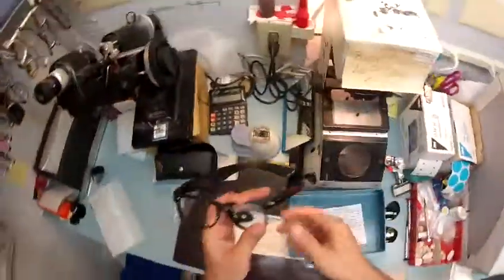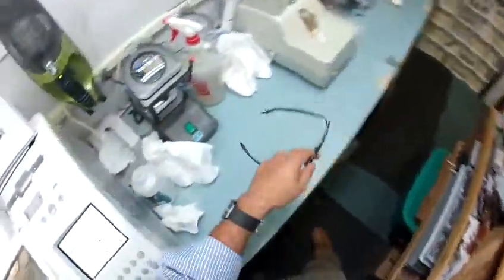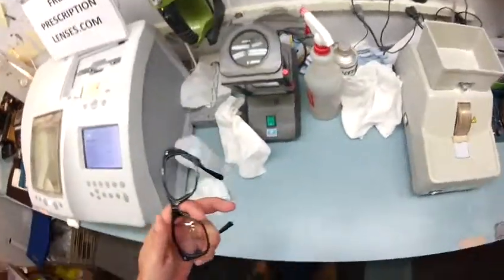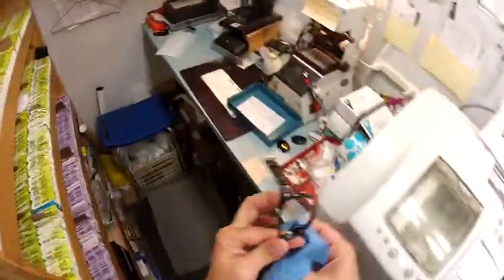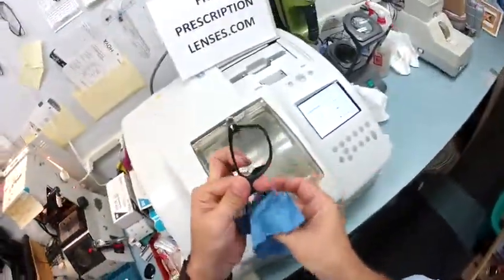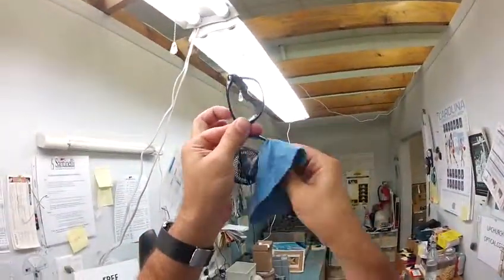This block is no longer needed, so I'm going to pop it off and pull this sticker off. I'm going to dry your lens off, and before I inspect for blemishes, I'm going to use my optical-grade acetone to wipe away any optical debris that the adhesive sticker may have left on the lens — clean all that off and dry it. By the way, you will be seeing the Ray-Ban cleaning cloth that comes with the case. I'm also going to include one of mine with instructions on how to care for both cleaning cloths and the Italian leather Ray-Ban case — it'll last you for years. No other seller on the internet does that.